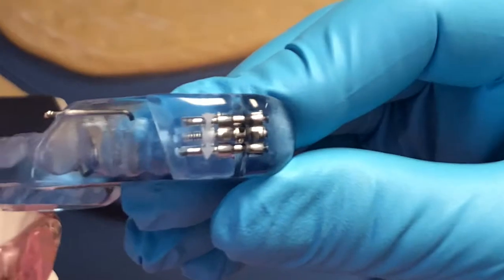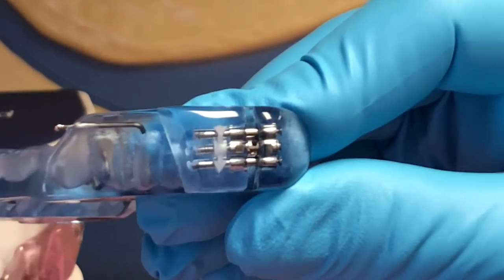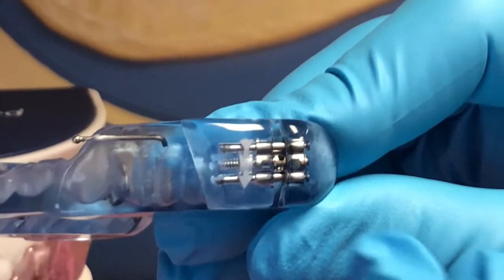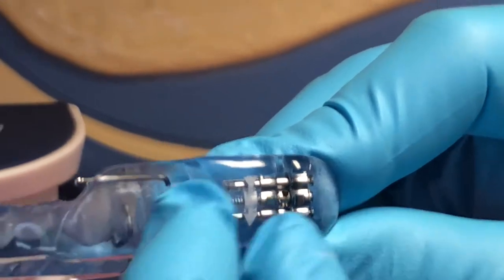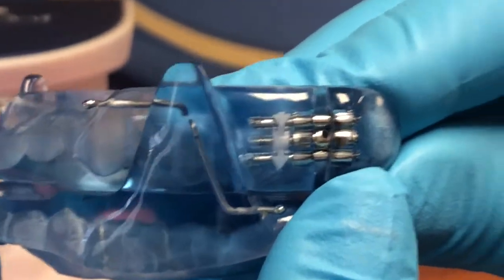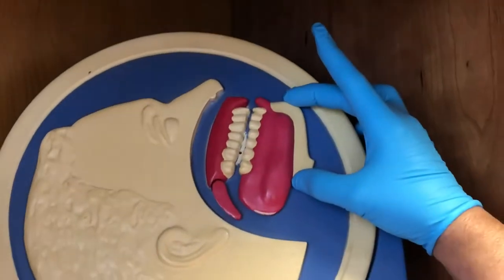So how it works is, as you advance it, you are not making it tighter or looser, but this area will spread, this component, and will then come across and hit this part of the device more and more forward. So when you're doing that, you're opening that airway, as in this model, you're going to be actually bringing it more and more forward.